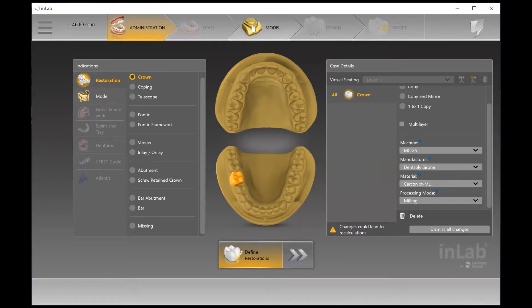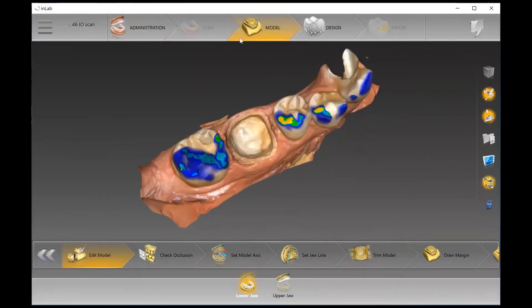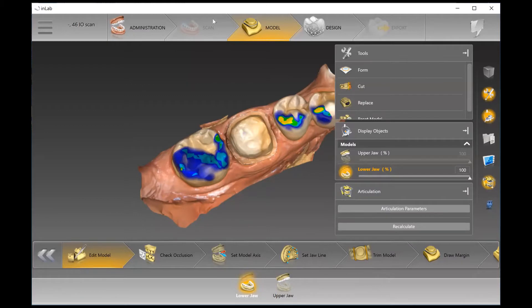When I move forward, you're going to see that the scan phase is grayed out. That is because this is a case I've downloaded from the Connect Portal, where an intraoral scan would have been sent to the laboratory. So when that happens, the scan phase is grayed out.